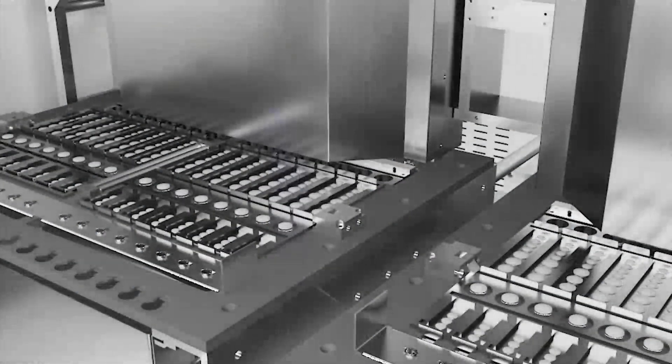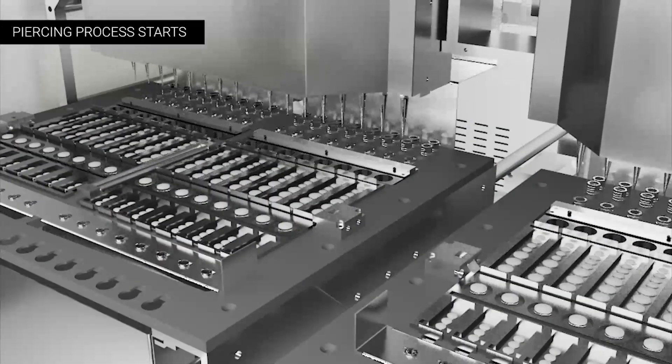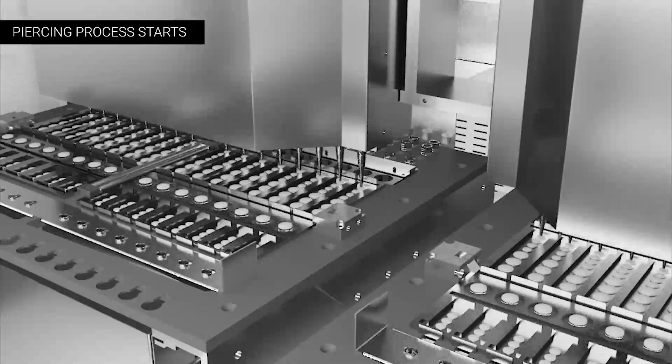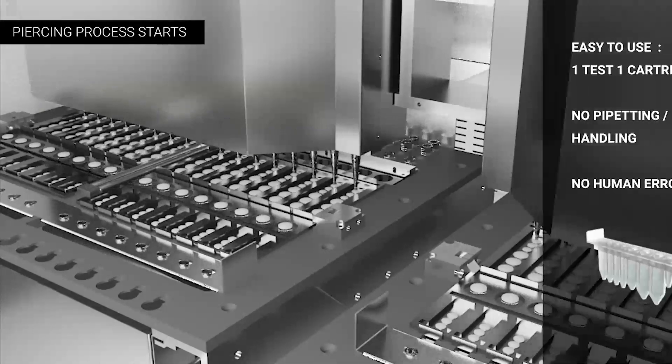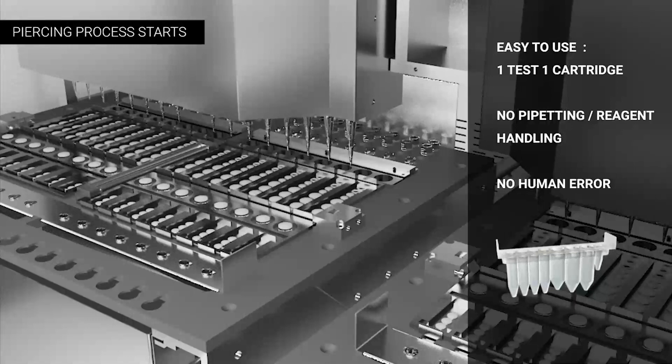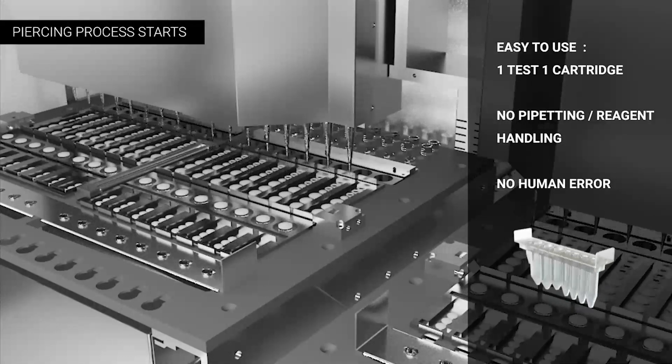The product is designed to automate lab operations from sample handling to RT-PCR tube preparation and to do them in one single compact benchtop machine.